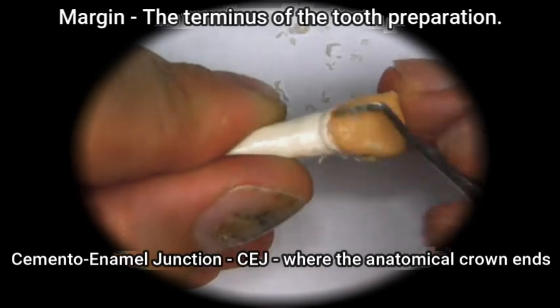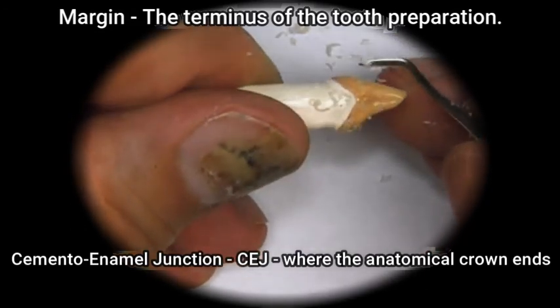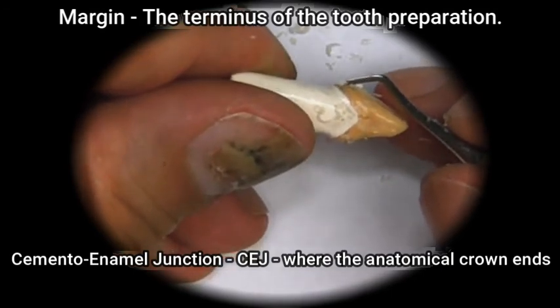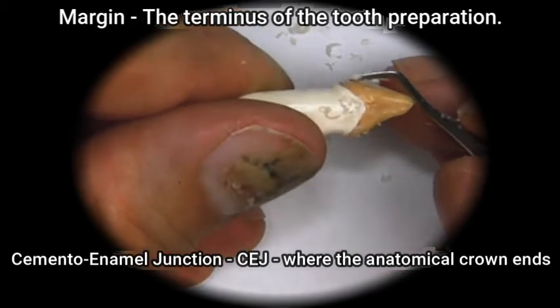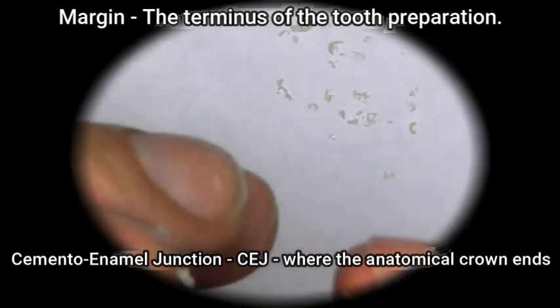If we look at it from the side, we can see the curvature run into the tooth at the same level right here.